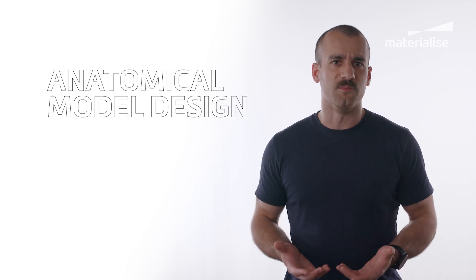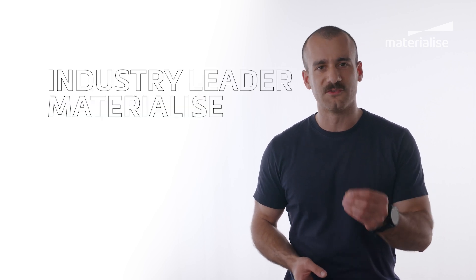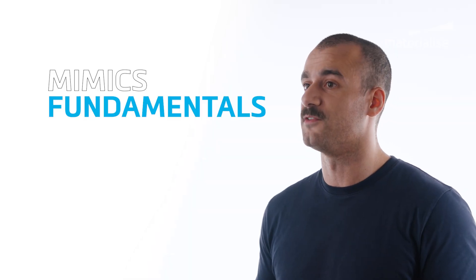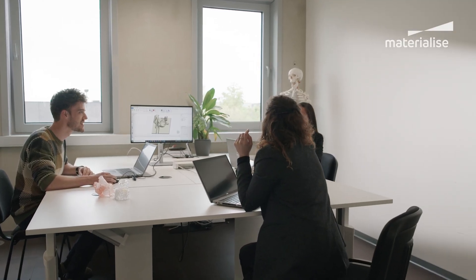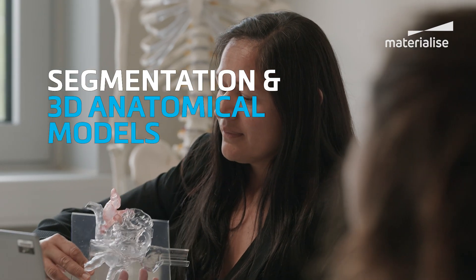What better way to master anatomical model design than by learning from an industry leader such as Materialise, who has pioneered many leading medical applications in surgical planning and 3D printing. And this is where the Mimics Fundamentals training comes into play. This online training covers all the basics you need to start working with image segmentation and 3D anatomical models quickly.